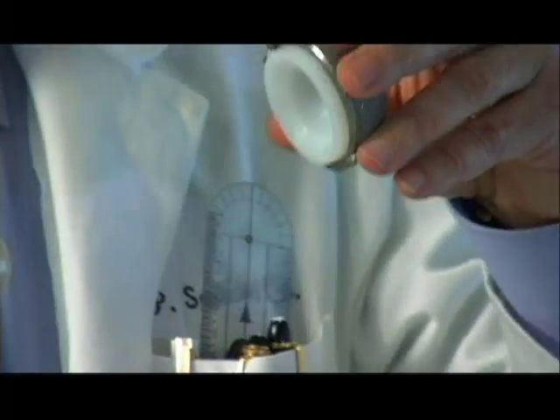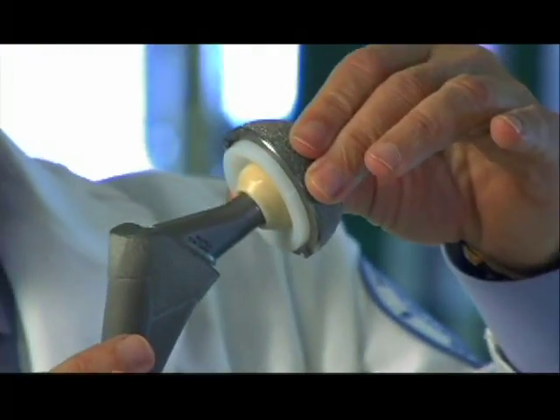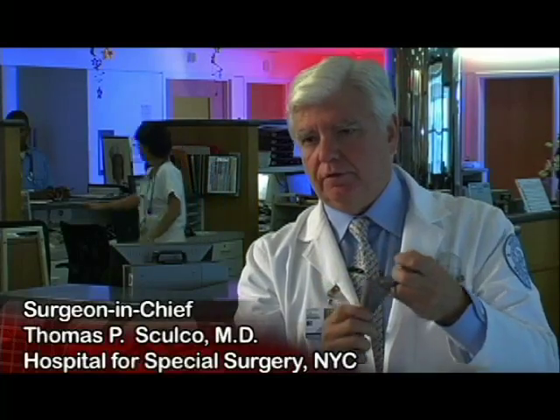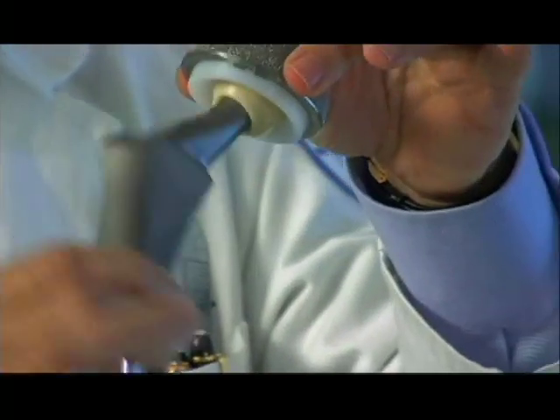When the socket goes in and the femur goes in, that's how the hip links together. The hip then moves as a normal hip would, and the soft tissues or muscles incorporate around this device to give it stability and are attached to the bone to make these processes work.